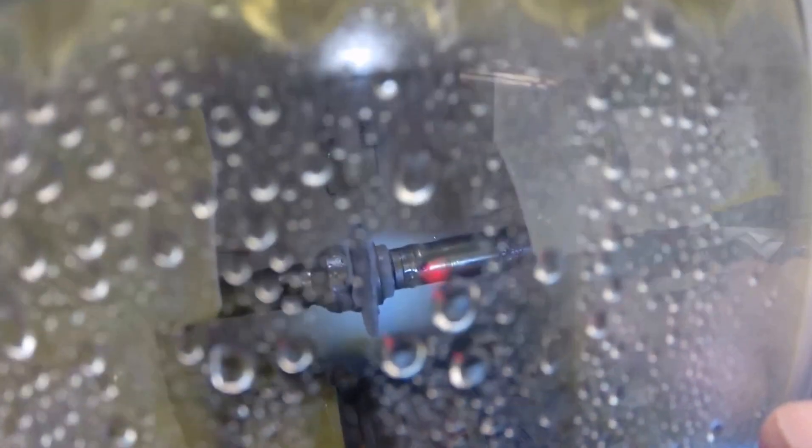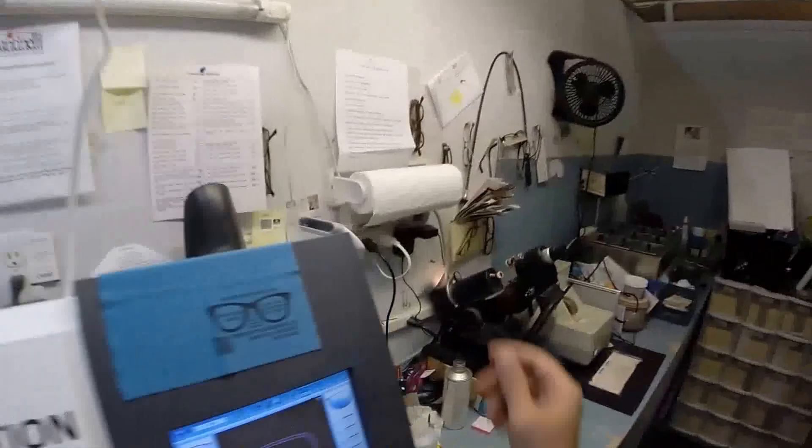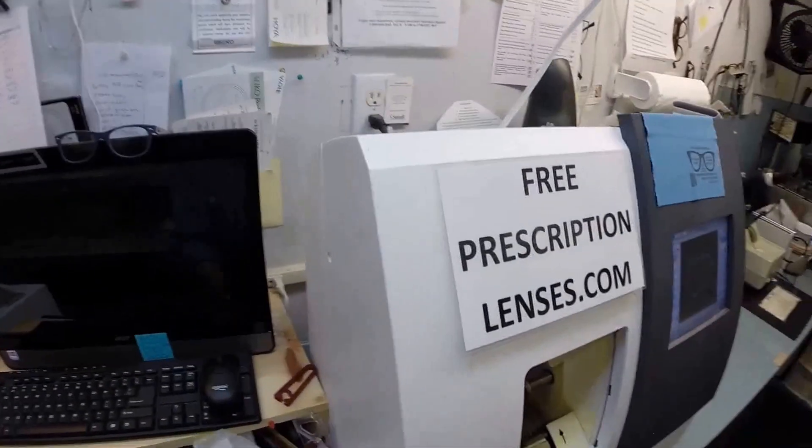As you can see, water has begun spraying onto the lens. It does that for the last 20 seconds to wash away any optical debris. In just a moment, this lever will come out - at the end of that lever is a spinning wheel, something you would find on the end of a Dremel tool. That's what's going to apply the safety bevel to the rear surface of the lens, just in case any lens comes in contact with the cheek - it will be smooth and you'll have no irritations whatsoever. Now I'm going to open this door with my mind. I can do other things with my mind - I can melt ice with my mind. It just takes me a couple of hours of staring at it, but then I can melt it. Ice is no match for my brain.